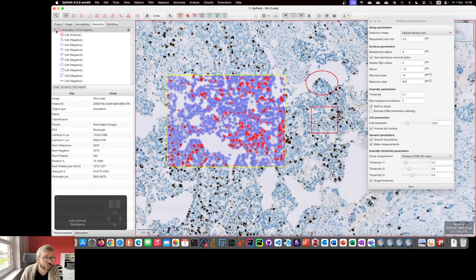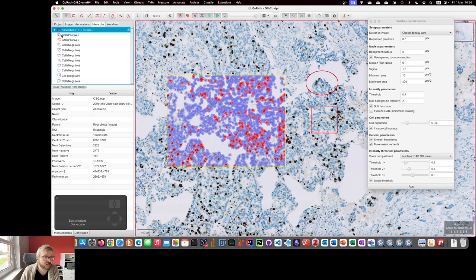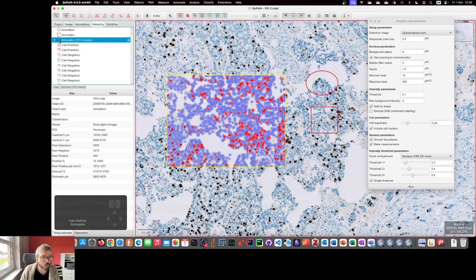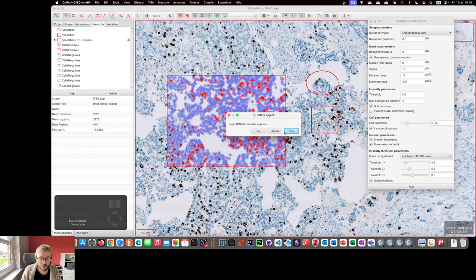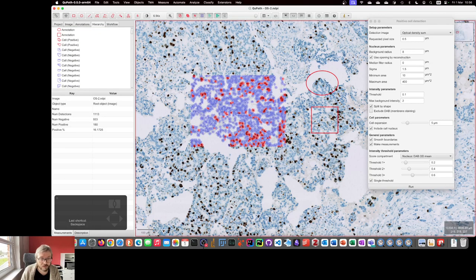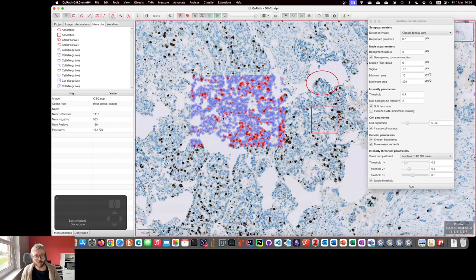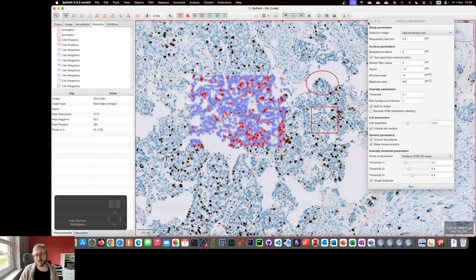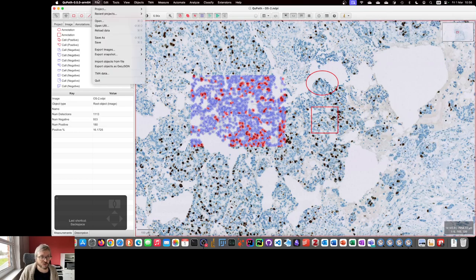We can go in here. We can select the cells. And we can remove them. Or we can remove the annotation that we had before. Let's not keep the ones that have. We can see the original ones are in there. So, that only happened because of unlocking, editing, and then detecting again. So, those slightly non-standard steps. Yeah. Can cause confusion.